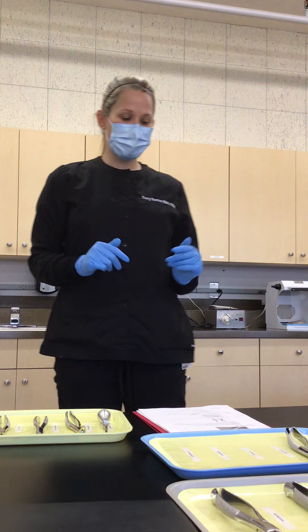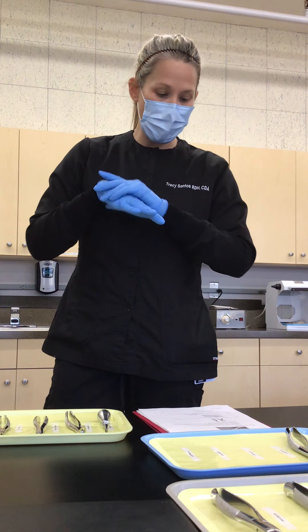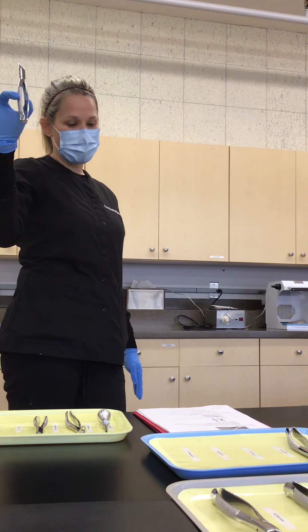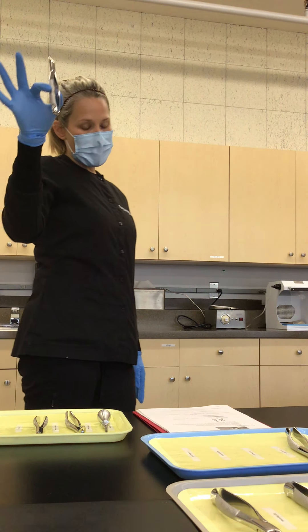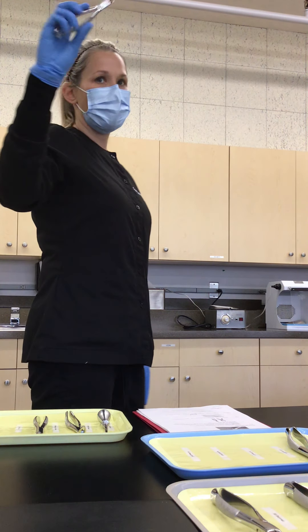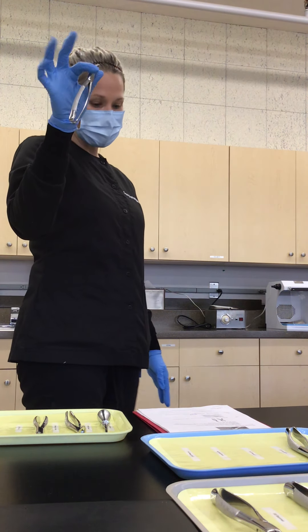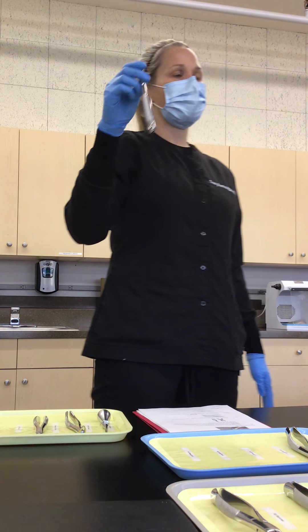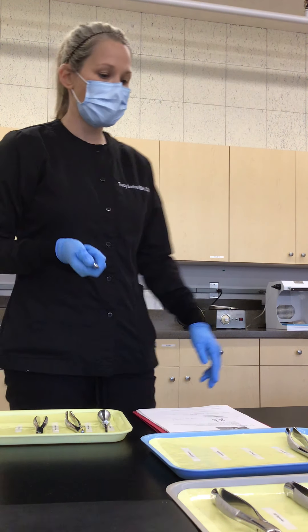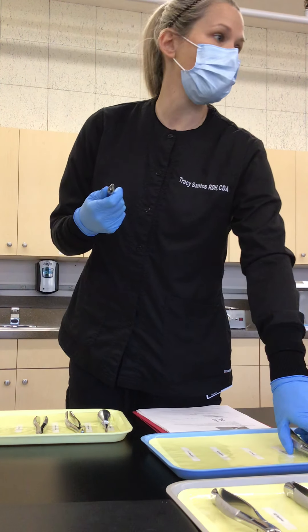They'll have just a slightly different version of numbers. The 101 is for all deciduous teeth — it removes teeth from the bony socket. All deciduous, full mouth, universal. All the forceps have a smaller design: smaller beak design, smaller handle design. We don't need the kind of force we'd use on adult-size instruments for a child's teeth.